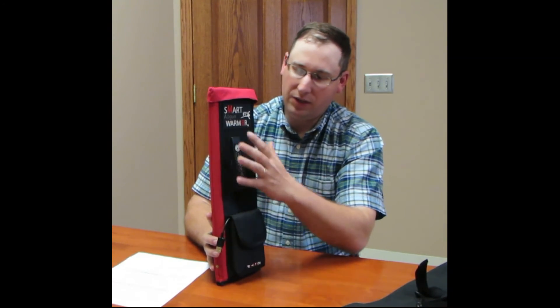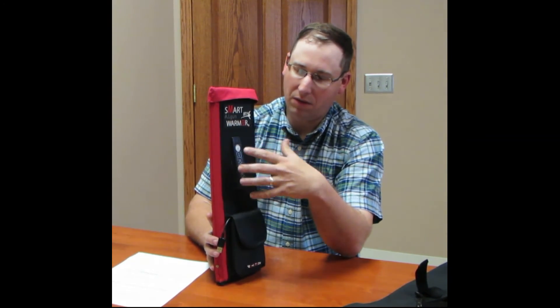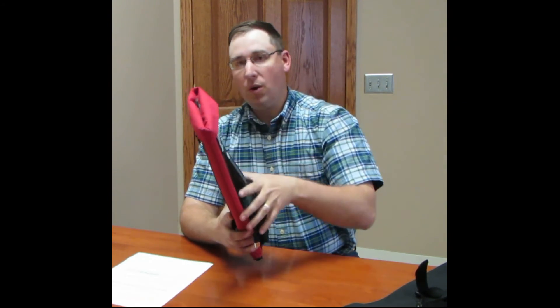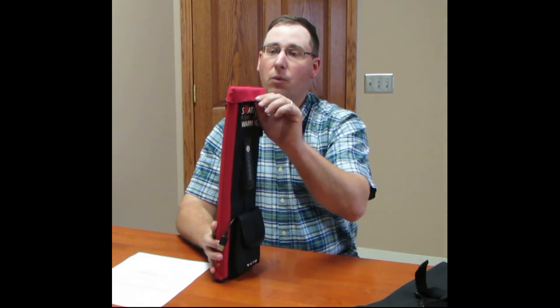It is probably one of the only systems on the market right now that's completely adjustable and has this really nice user interface that allows you to just select what temperature you'd like — making it very unique in the market today. We do have these in stock, available on our website at www.agtechinc.com, or you can call us at 800-367-4016, extension 1. The catalog number for this item is AI55, available through Agtech. Thanks so much for watching.